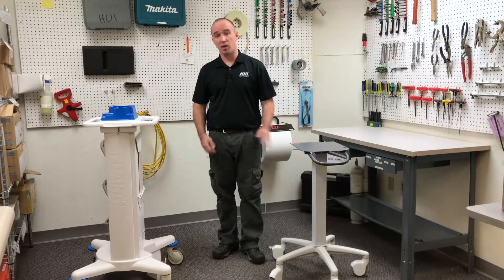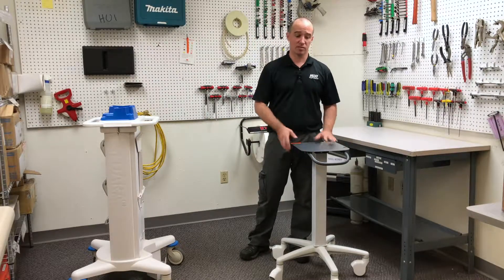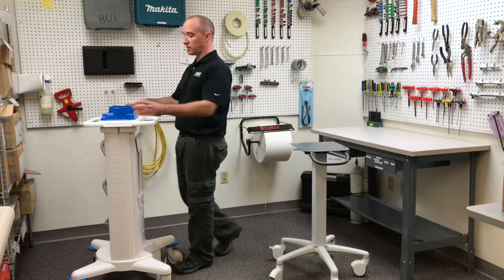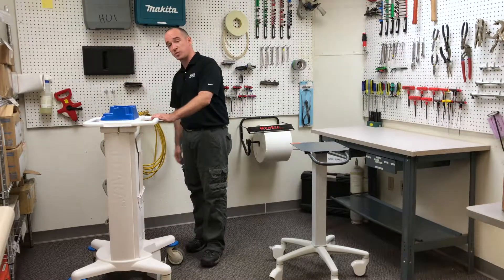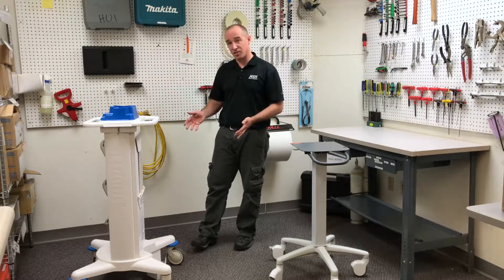The last column deals with how well we know our loading. In this example, we have a very flat surface — very generally, you can put anything on it. In this case, we have very specific cradles for the device itself and the disposables, very specific, so it's very quantifiable and accurately known.